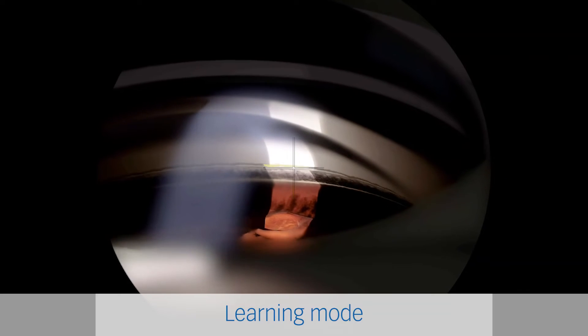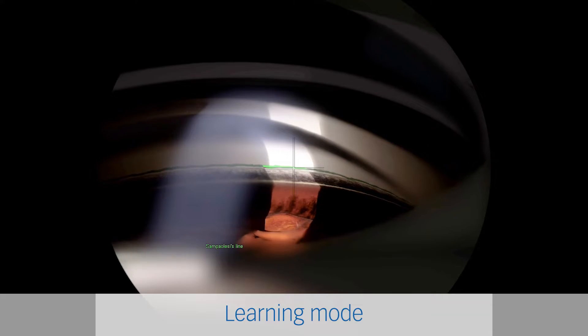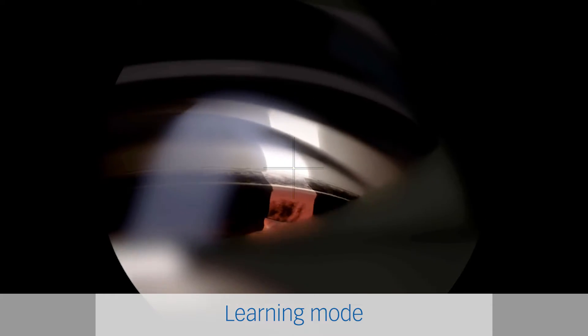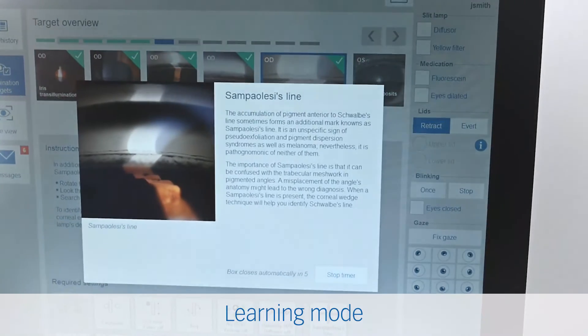In learning mode, trainees are guided through the examination and are supported by visual marks and medical background information.